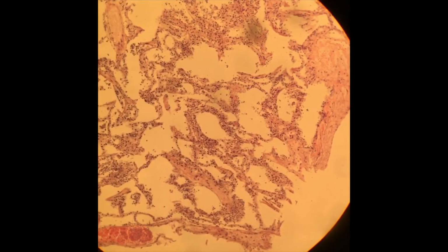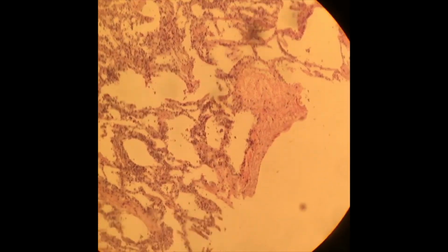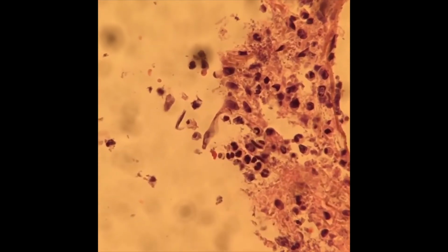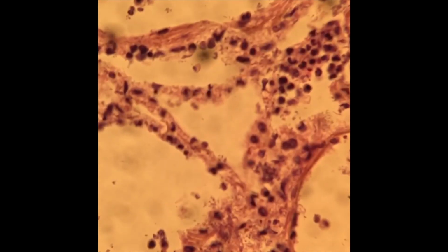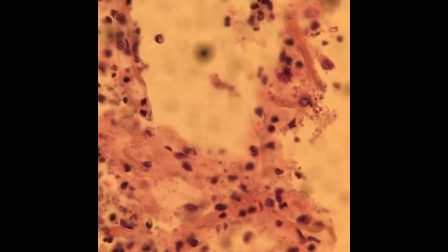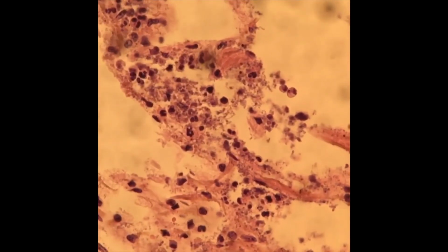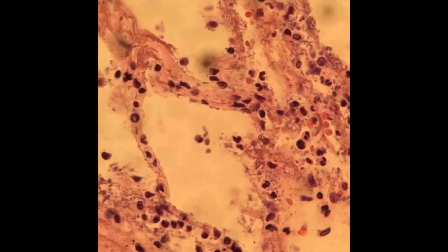With regards to the last video posted, I'm going to put it in perspective for you. So this is a section of lung, and as I go down for you to see more specifically what I'm trying to show here in this lung section, you tell me what you think. Alrighty, what do you see as it relates to the previous questions posed in terms of that bone marrow? What do you think about this area of the lung? It's a nice section, nice image, and you should be able to come up with a specific diagnosis about this lung.